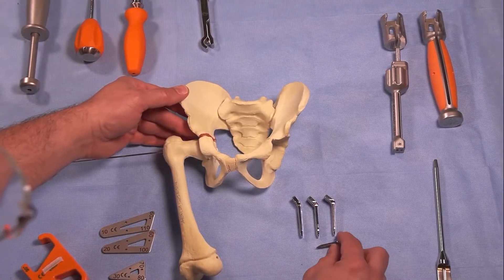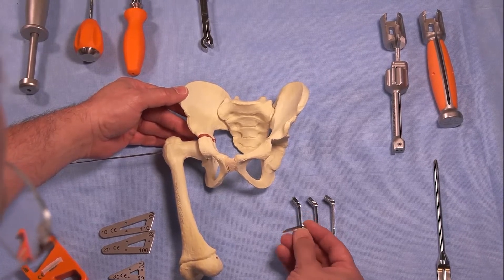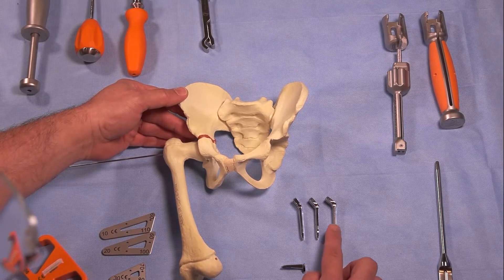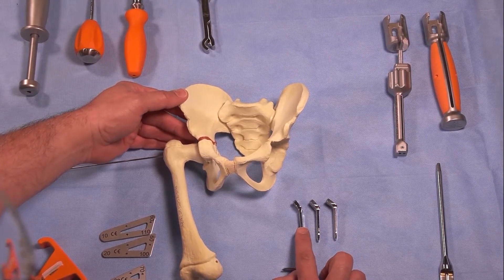As you can see here, we have an infant blade that is 25 millimeters in length and three sets of valgus plates, which represent 140 degrees, 130 degrees, and 120-degree valgus.